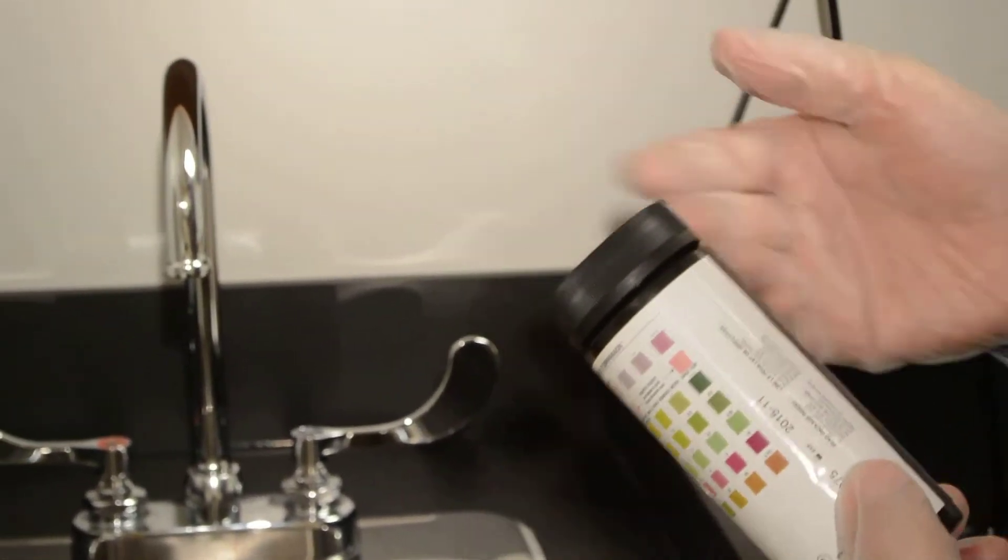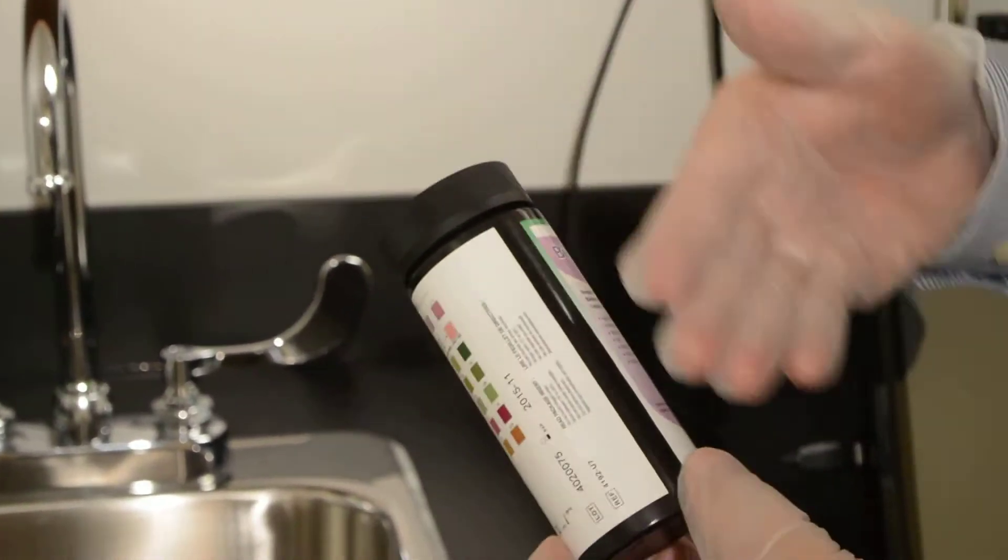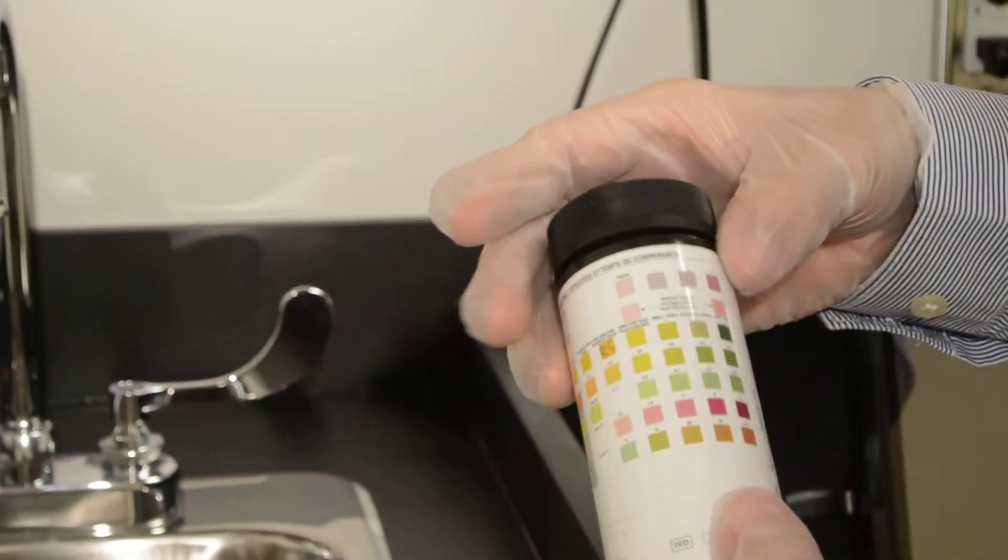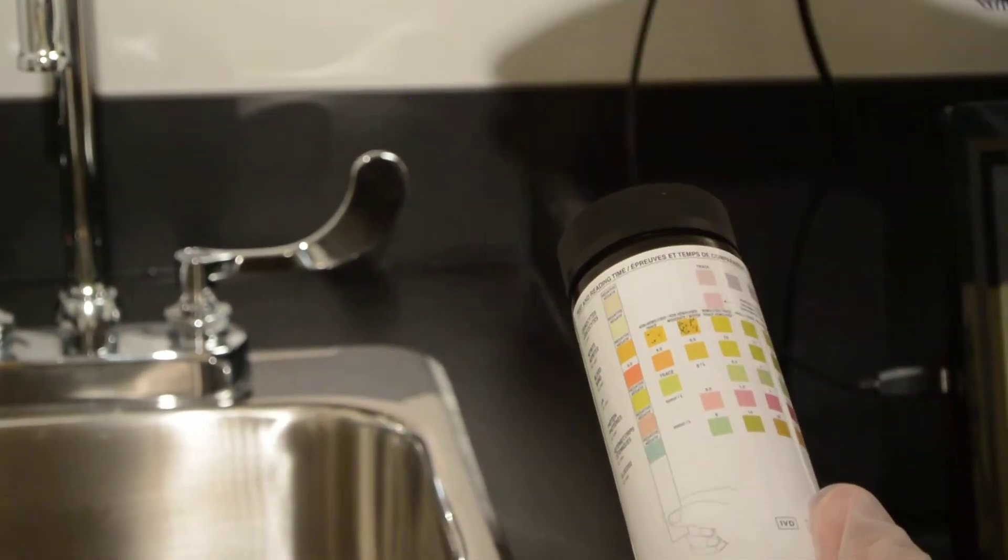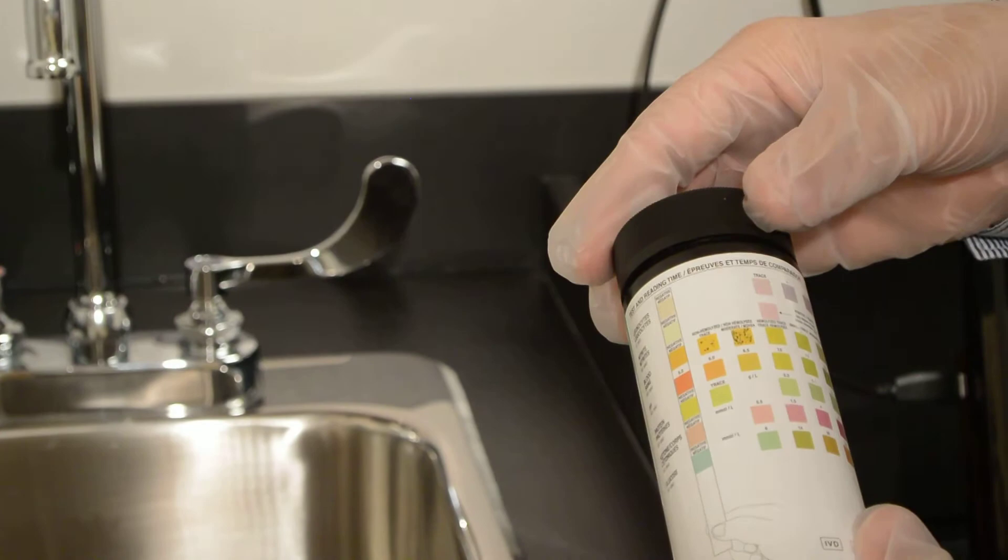Different manufacturers have different tests, different orders, and different amounts of tests, so it's important to pay close attention to what is written on the packaging.